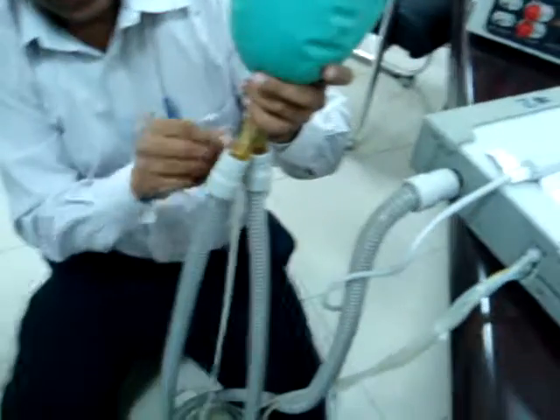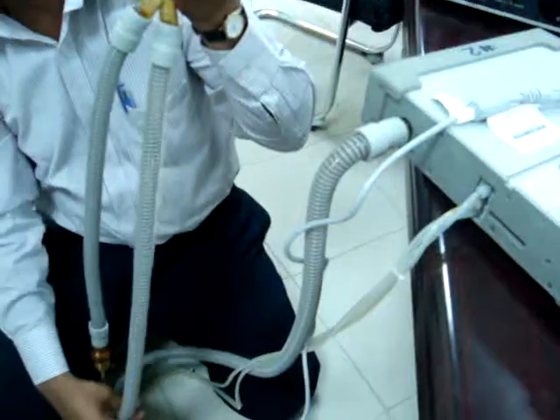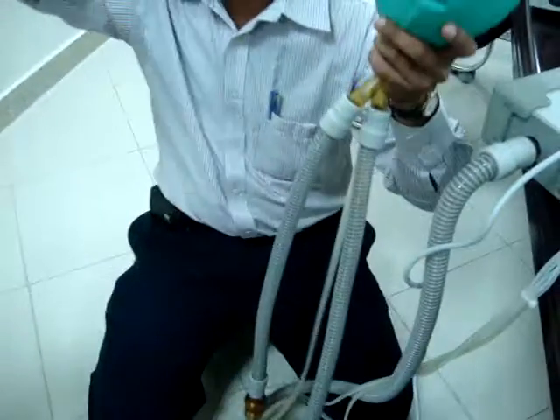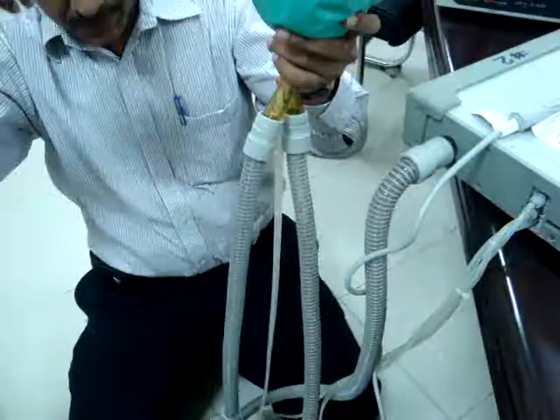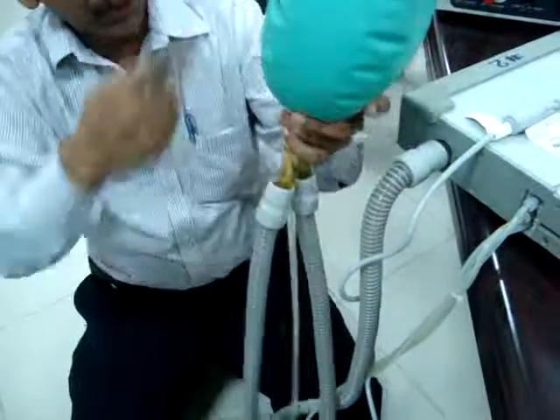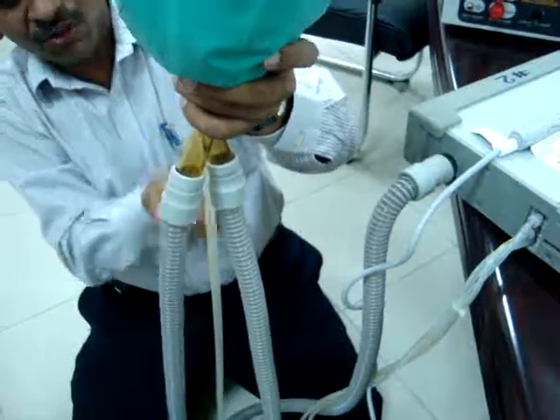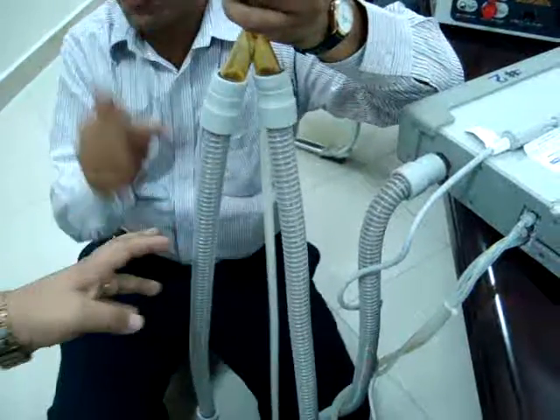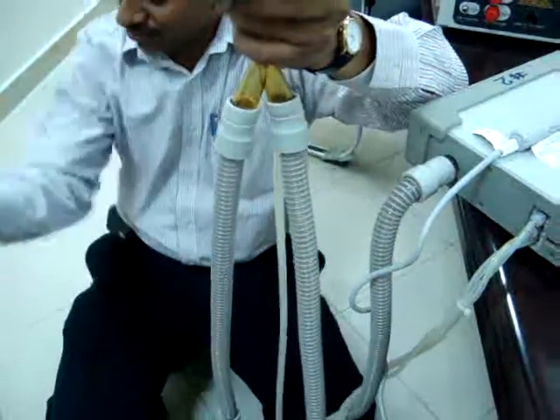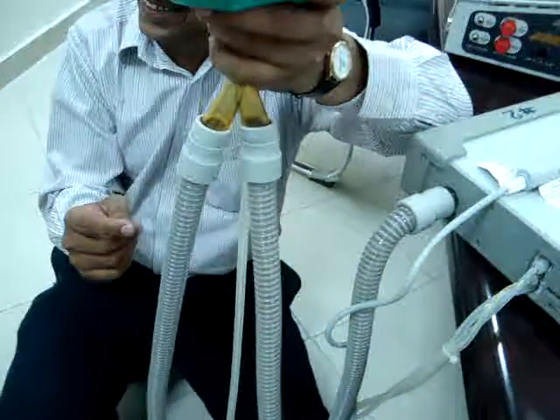There is gas inside. This is already pressurized. This gas will have a base flow, meaning a certain amount of pressure is already there. When the patient is exhaling, logically it will go where there is low pressure. Low pressure. Did you understand the question? Yes, I answered him like that.